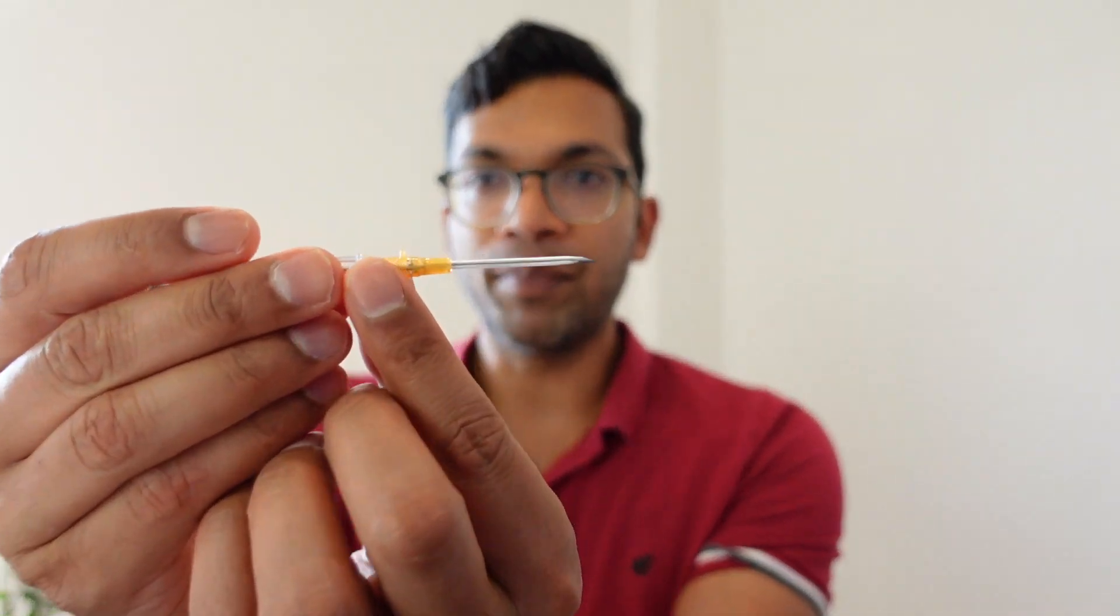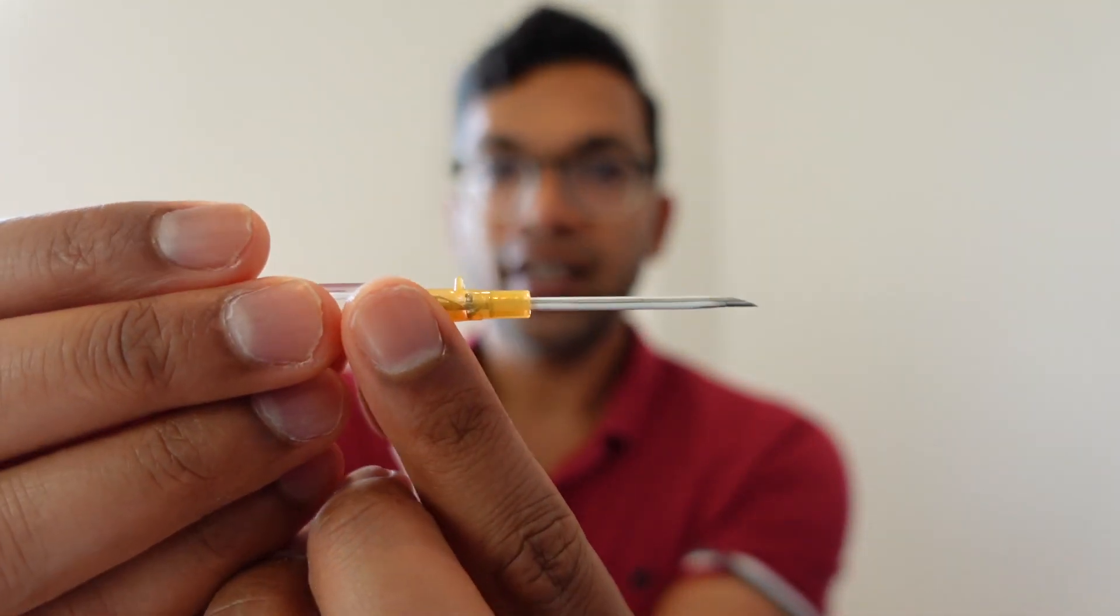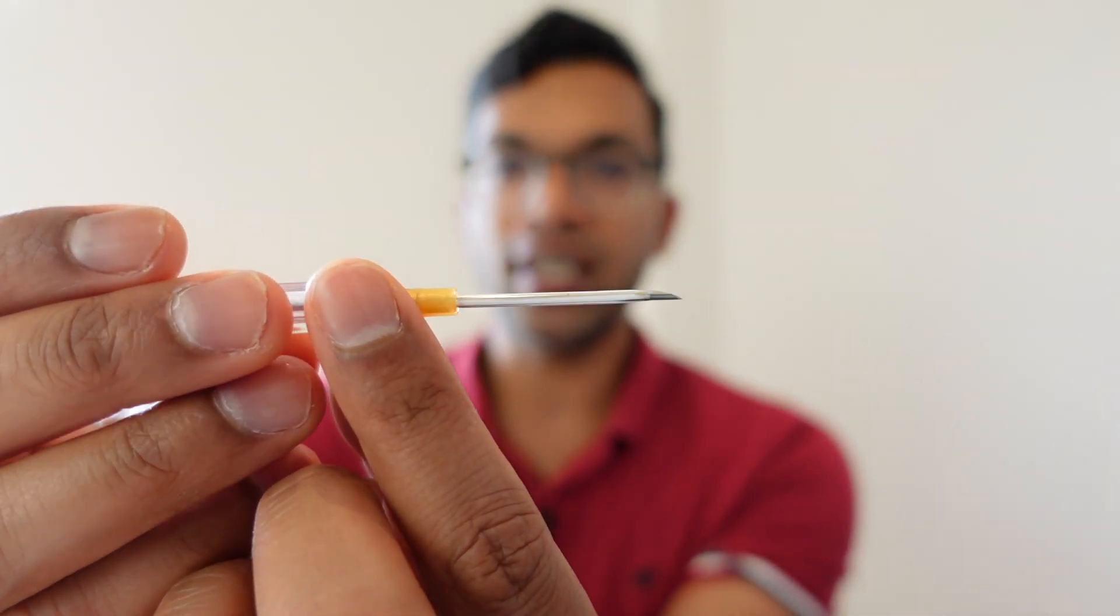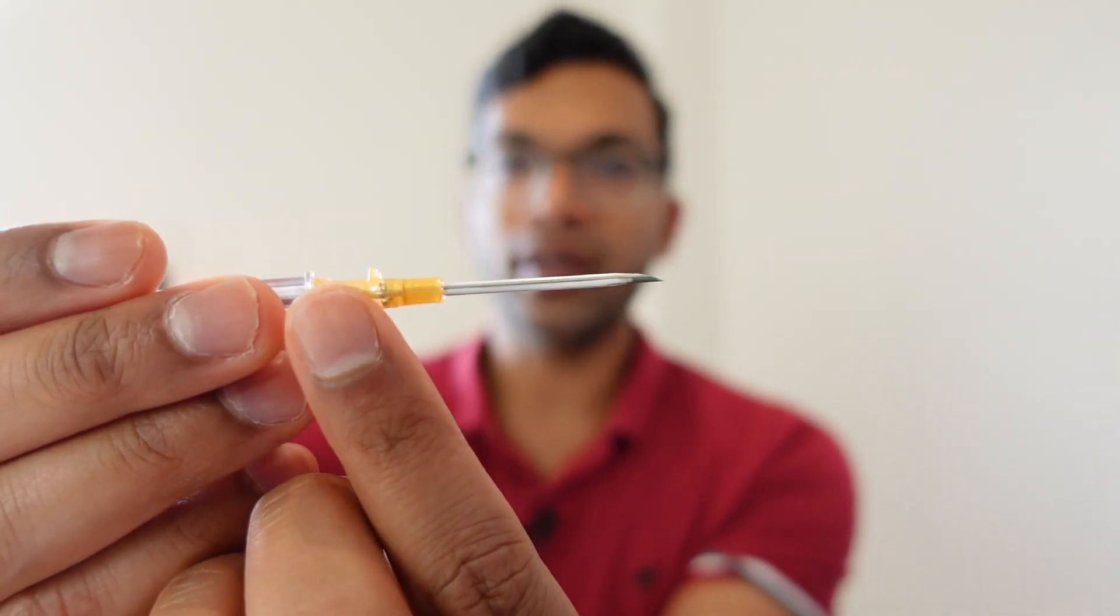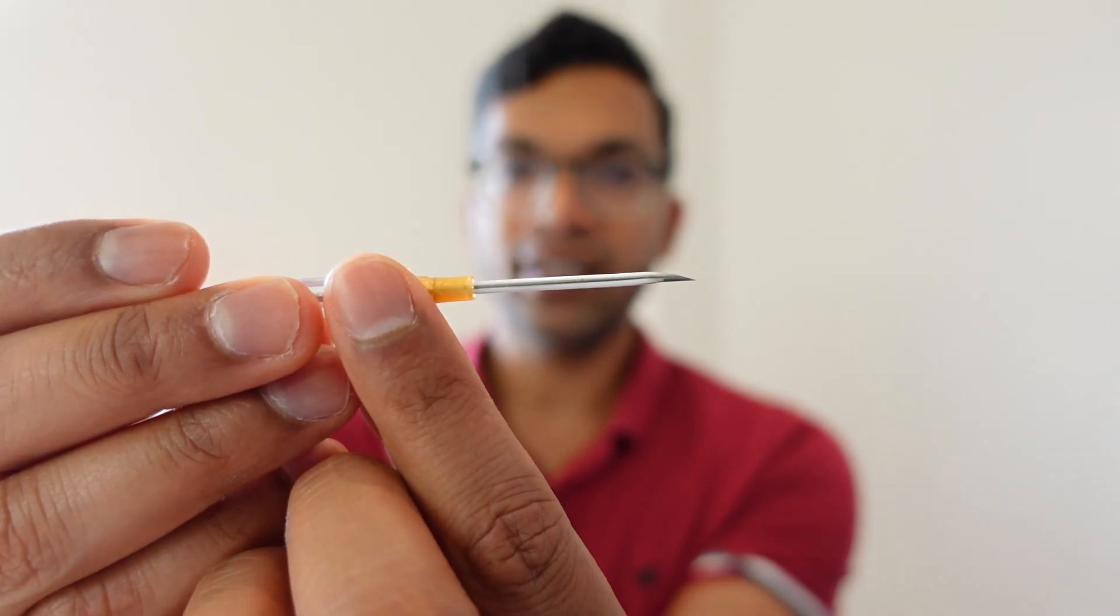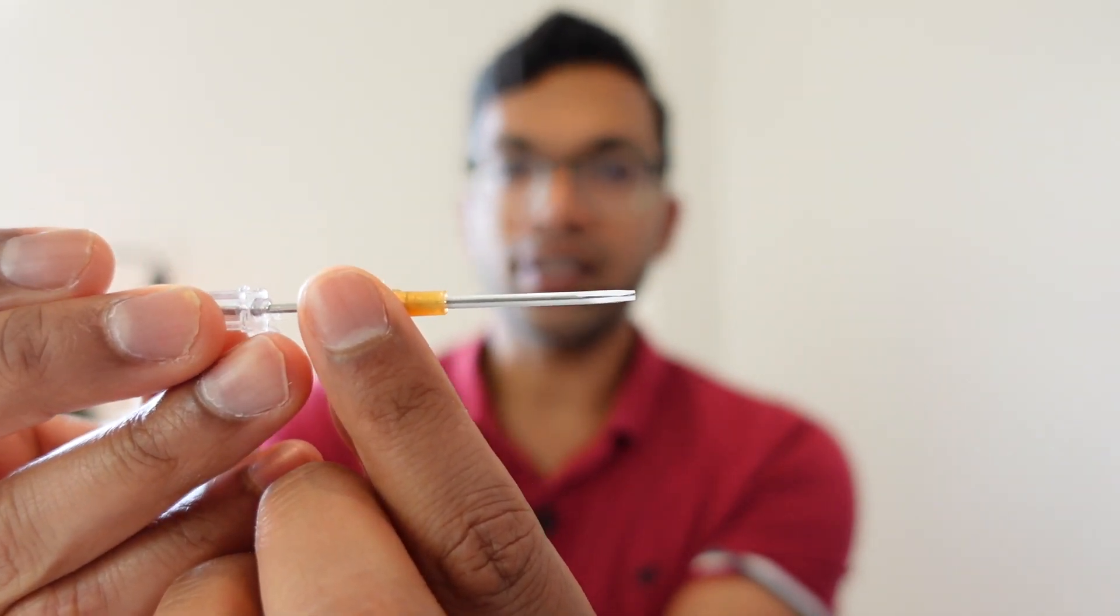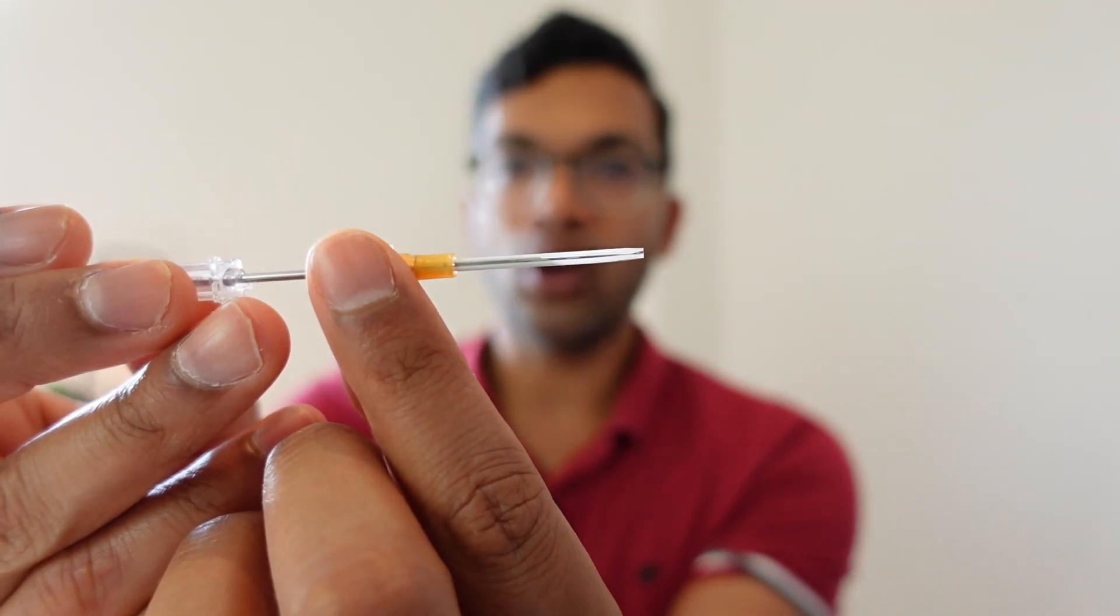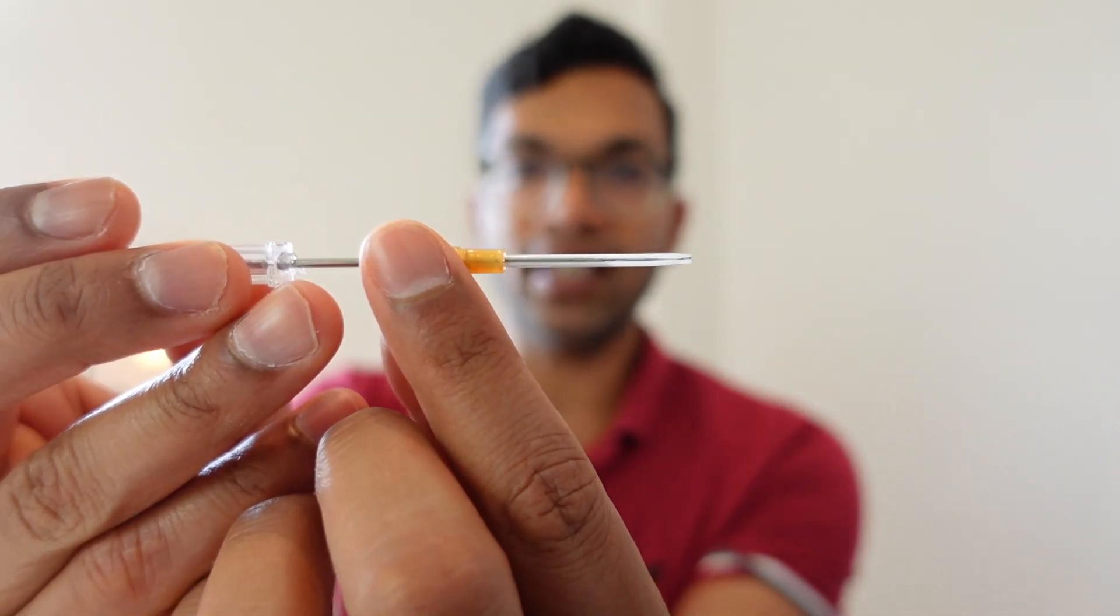Now just a bit of a refresher, this is a 14 gauge needle, probably the best way I can really demonstrate. There are essentially a few components, but the first thing to know is that you have a needle, a chamber, and the plastic cannula. So the needle is on the inside, the plastic cannula goes over the needle, and that's the thing that's left inside the vein.